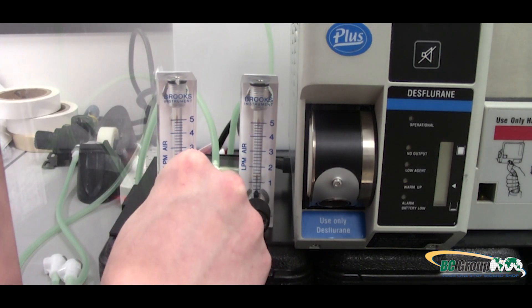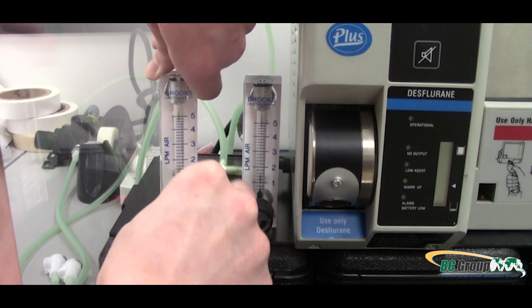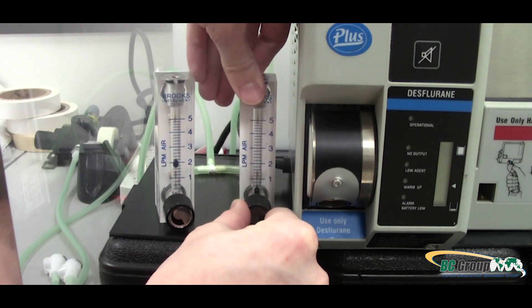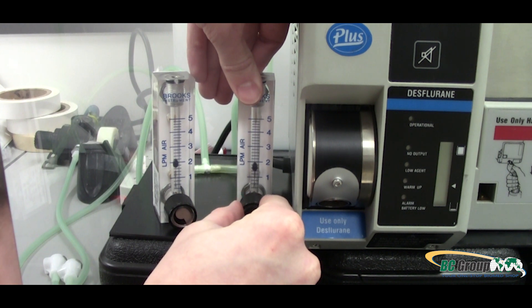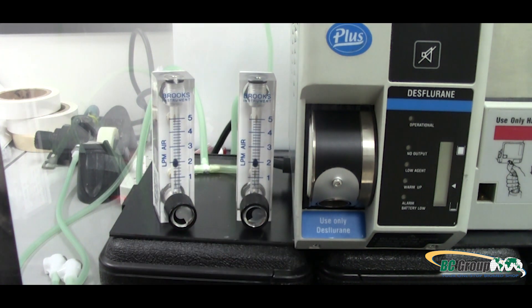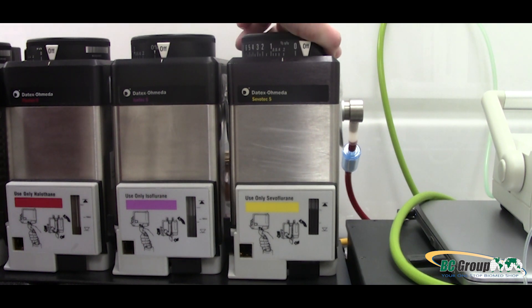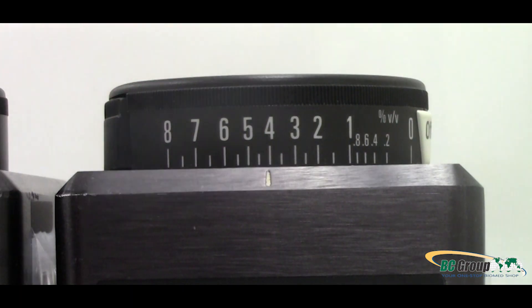Follow OEM vaporizer efficacy test procedures for the vaporizers to be tested, which lists the carrier gas type and flow rates as well as allowable tolerances for the dial settings to be tested. Once the carrier gas is flowing, turn the vaporizer dial to your desired value.